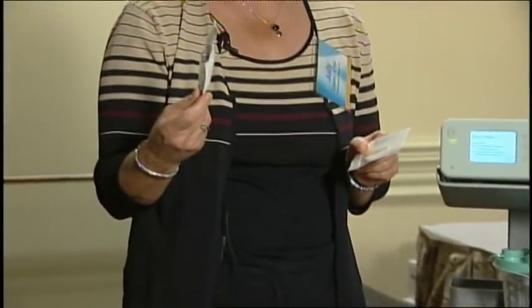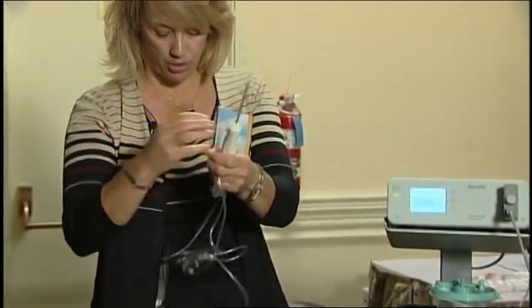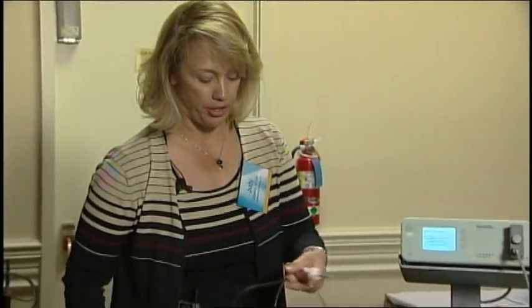In the Encore packaging you get a little extra tray and some small adapters. I tend to drop these right on my sterile tray so that I'll have them during the biopsy. We're going to hook up a 10-gauge Encore here.